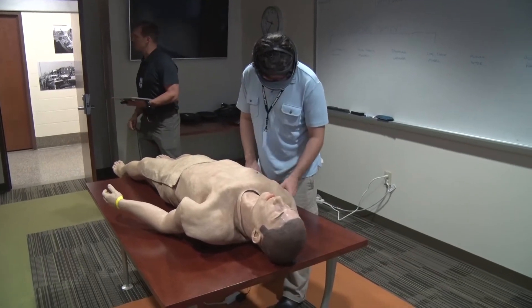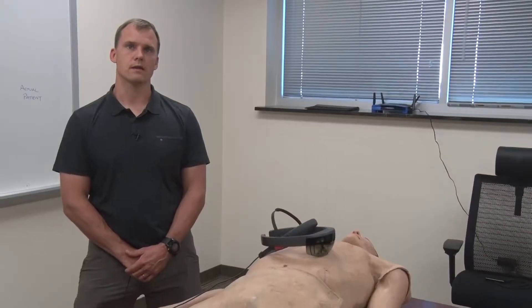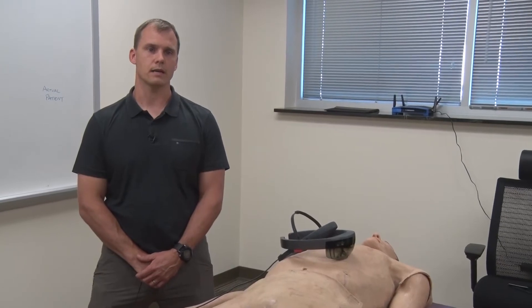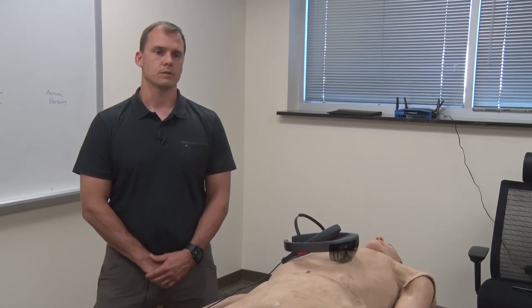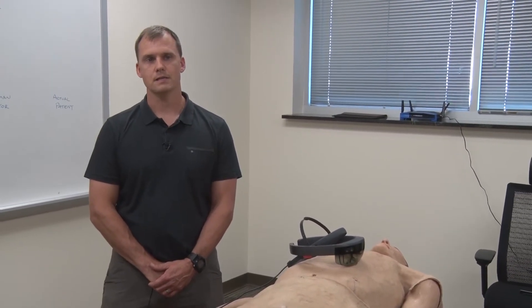Through years of training in these spaces, we recognized that there were some gaps that had been created between low-fidelity mannequins, high-fidelity mannequins, and even into live tissue models.